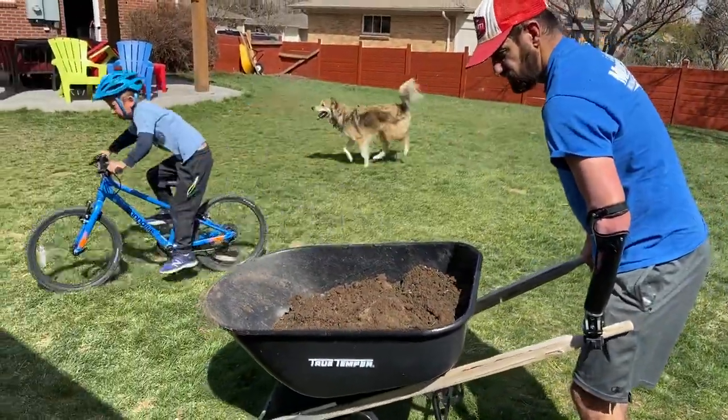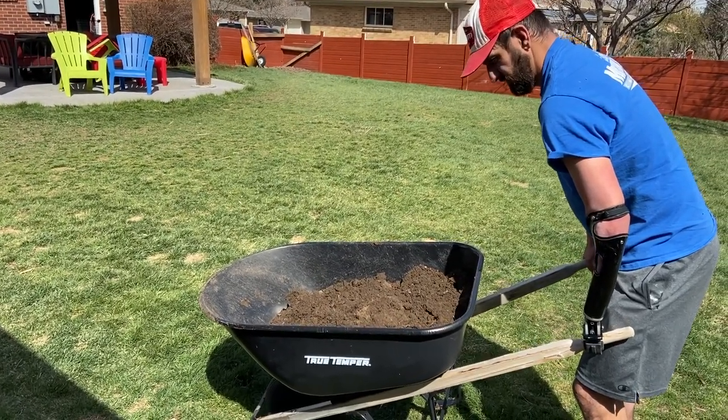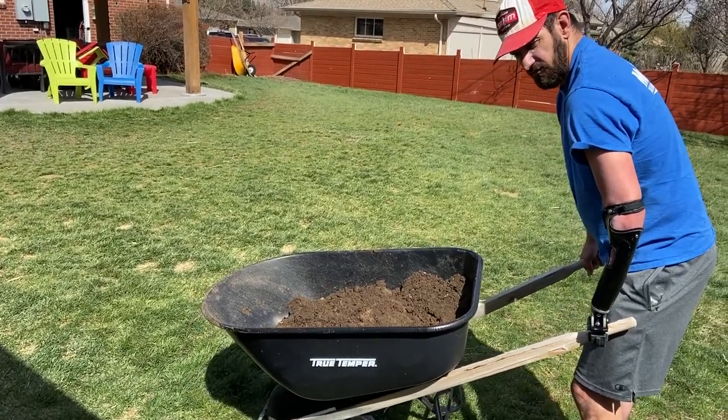This jaws really helps along with the yard work, and I just can't believe the strength and quality of the stuff I have. I never have to worry about it.